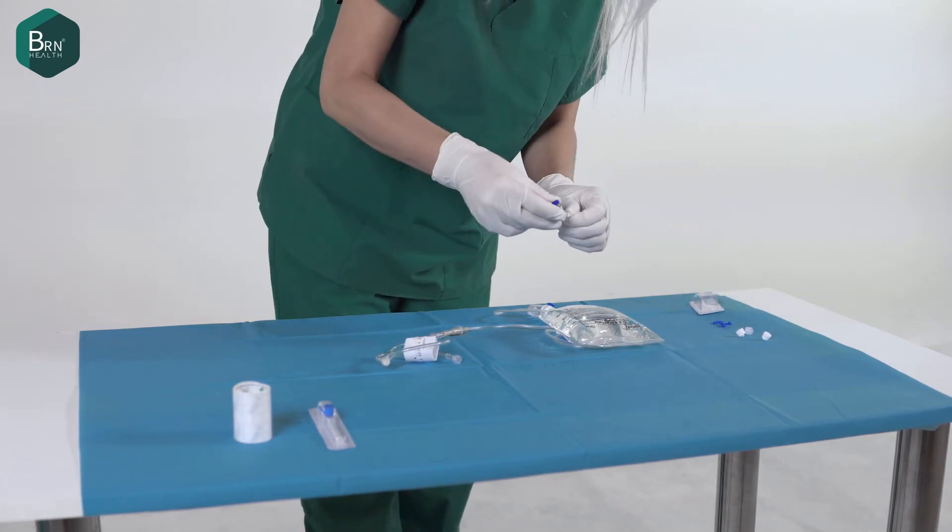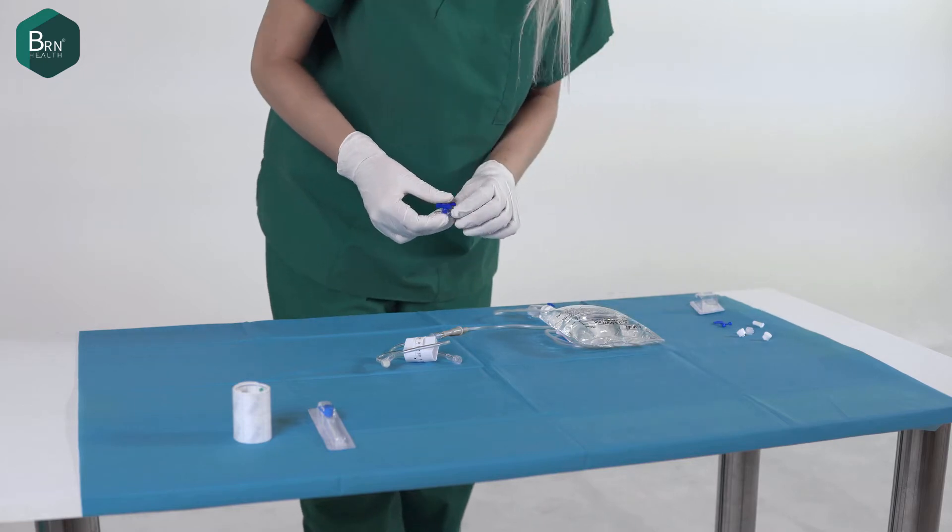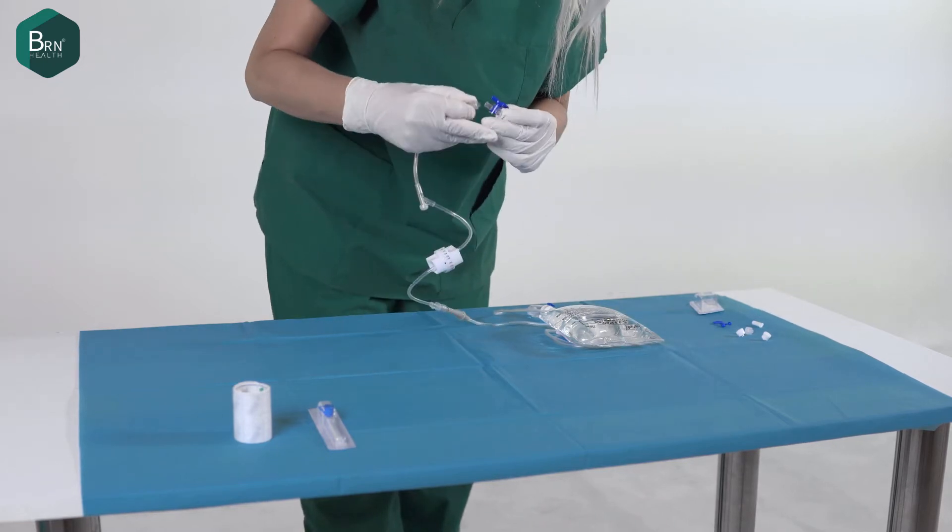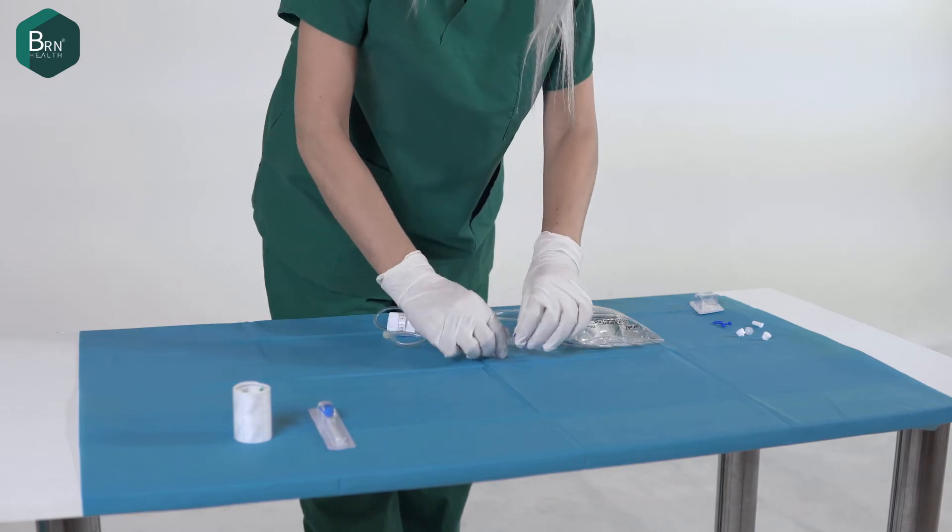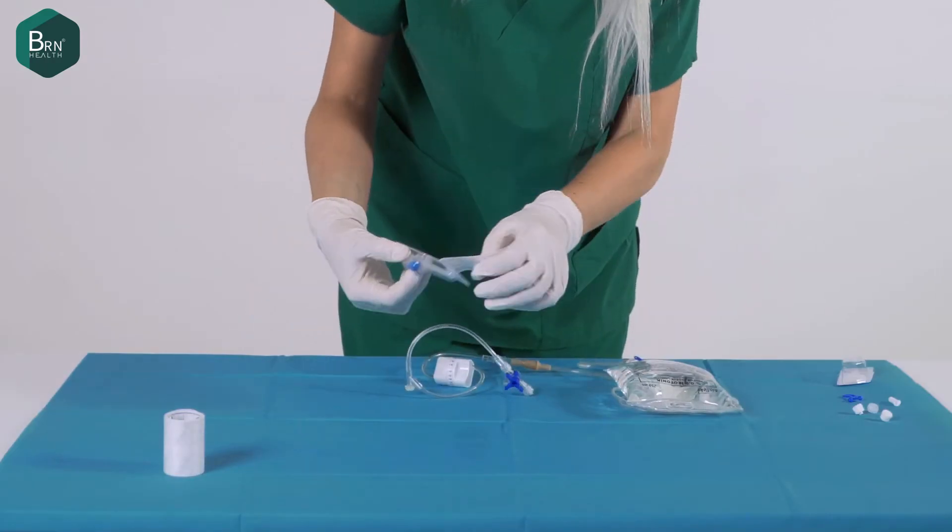Cylindrical IV flow controller is a fluid flow regulator that works with the gravity principle. If this product is stored unopened and under correct storage conditions, the shelf life expectancy is five years.